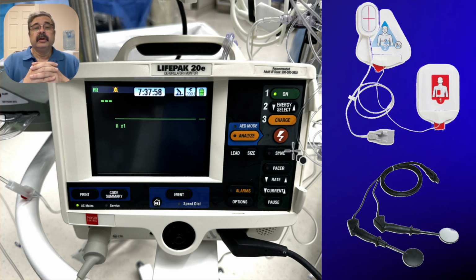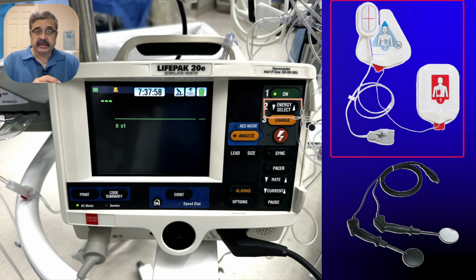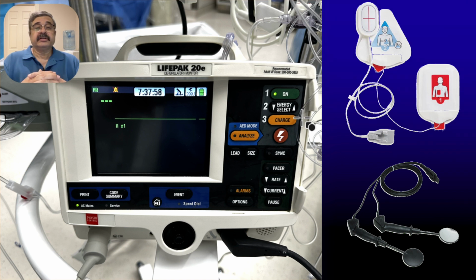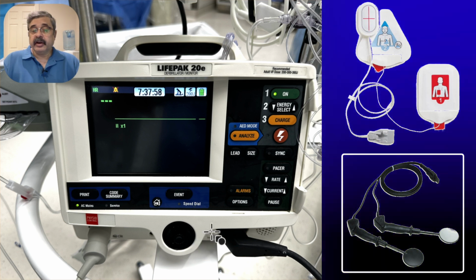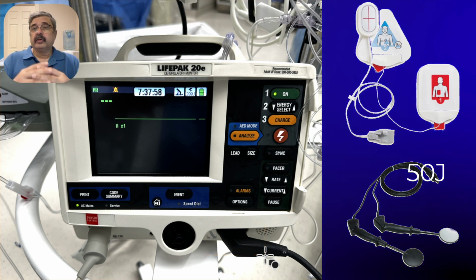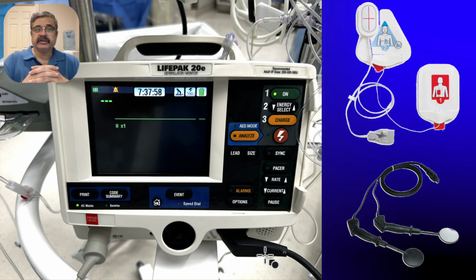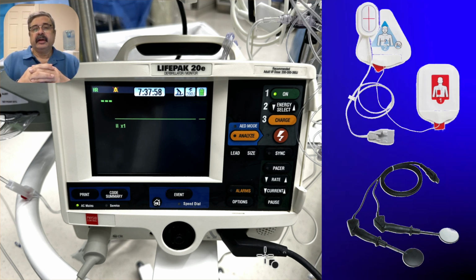Now, a few things to remember, specifically for energy select options. When we are using the transcutaneous R2 pads to cardiovert or defibrillate, we can choose to increase the energy to its max over 300 joules per shock. But when the internal cardioversion paddles are connected at this location, in that situation, the upper limit of the energy is only 50 joules, and it would not go to 100 or 200 joules because you have direct contact with the heart, and therefore you need very little energy to cardiovert or defibrillate. That's an important point to remember.